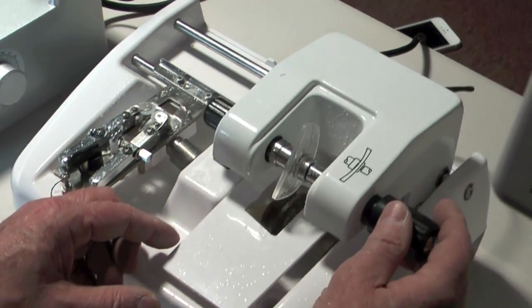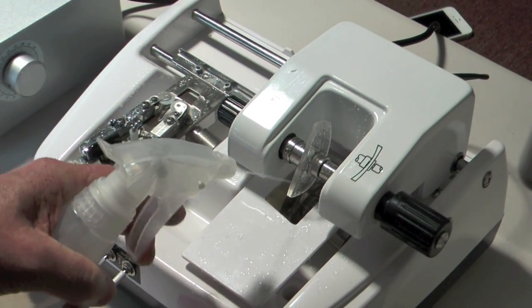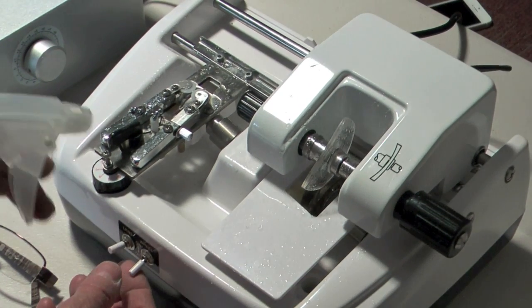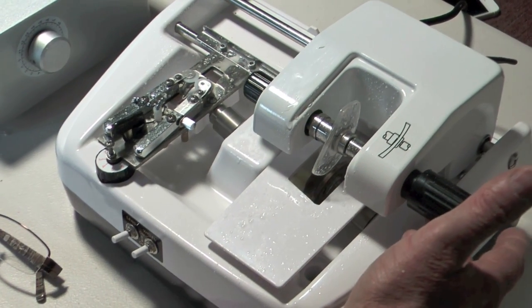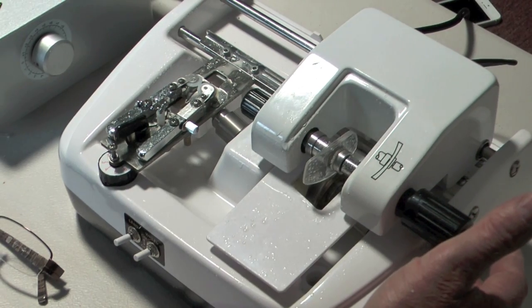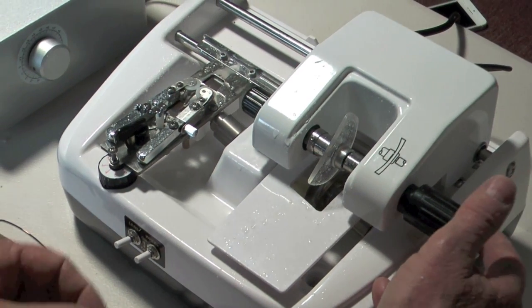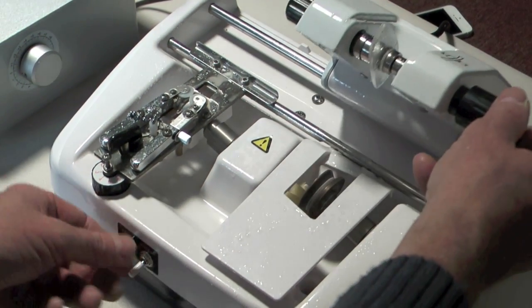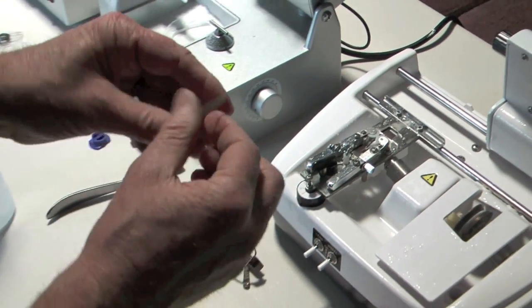That has put the groove nicely in the center of the lens. So I'm happy with that. We're going to do the same on here. We're going to put a bit of water on there. And then very quickly, just let it go around once. And then take it off. That's it.